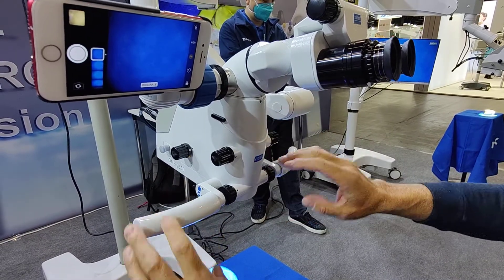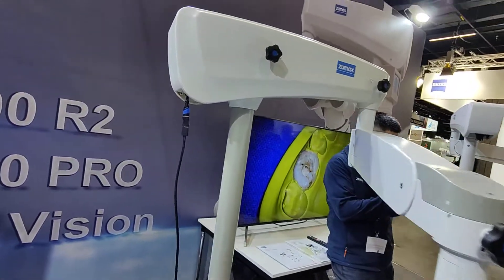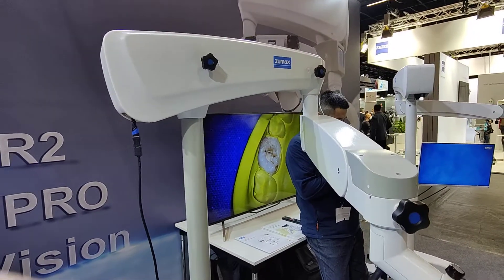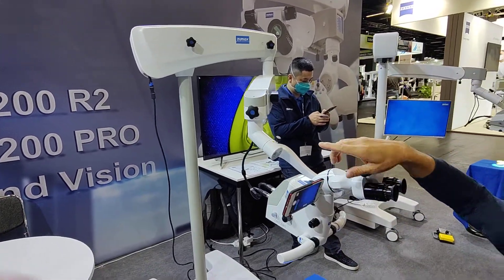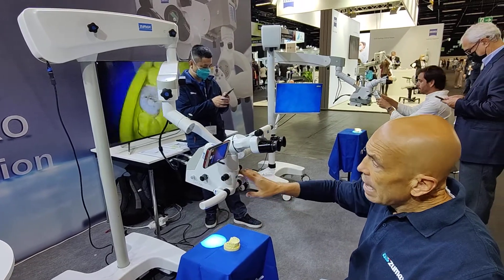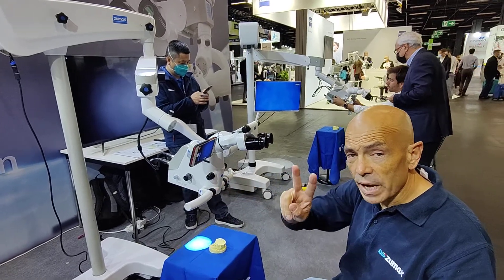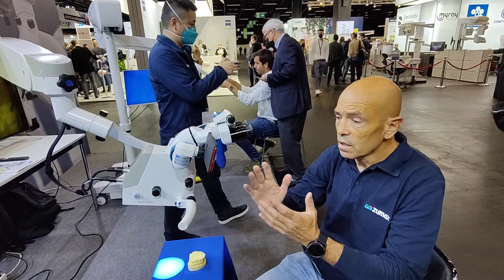The pictures and the video will go on a USB card on the machine, which is on the back side. At the same time we have the possibility to connect to the PC network so that we can share the pictures from the microscope with the computer network. For the camera system, we have the 4K video camera or two options: one with the 4K and the other one with the full HD, depending on what you want to do.